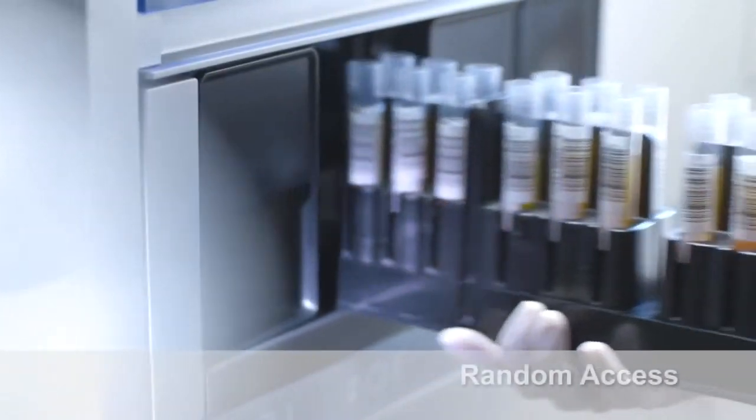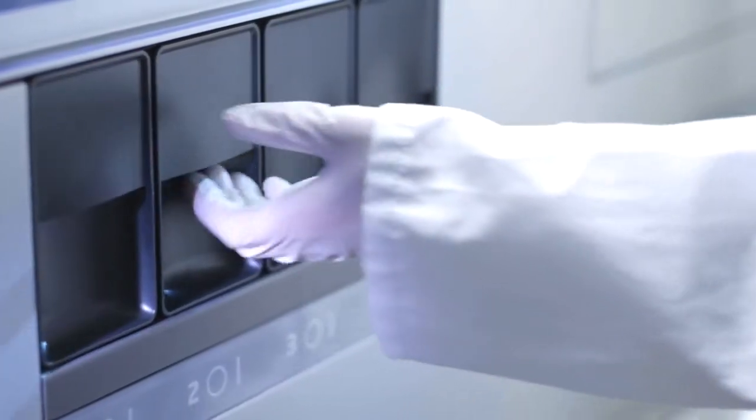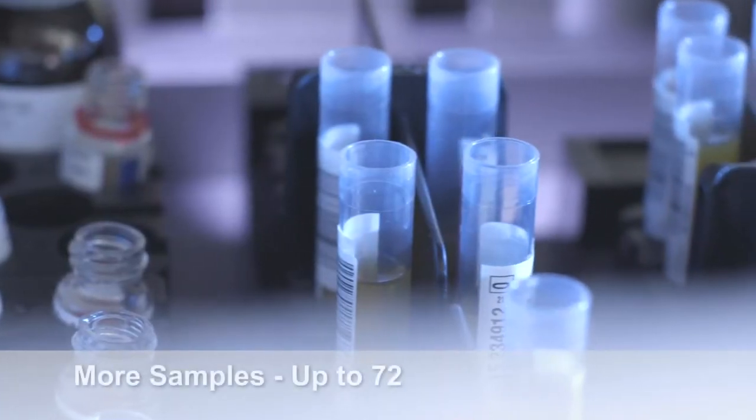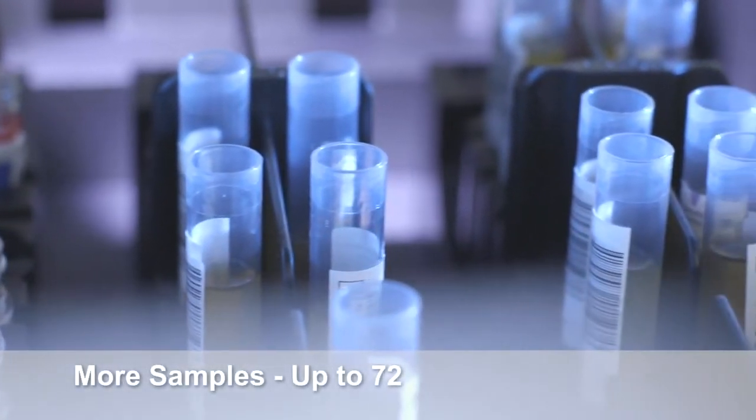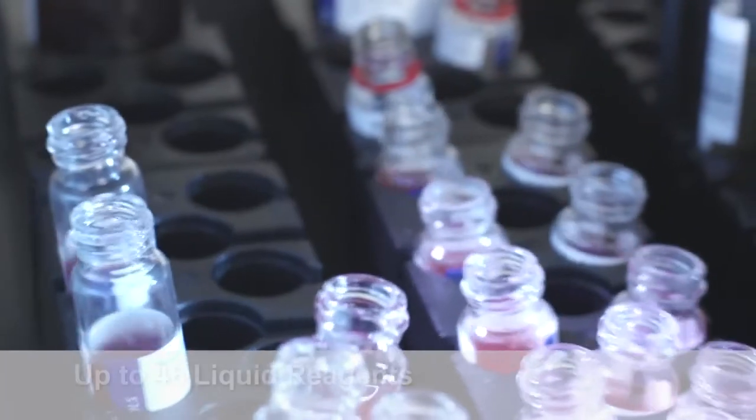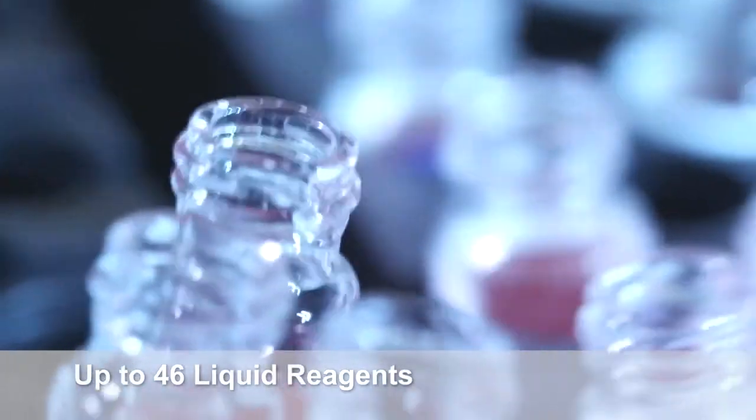You can load samples and reagents continuously, and they can be placed in any position. Thanks to the interchangeable racks, you can customize the configuration of the system according to your laboratory workflow. You can load up to 72 samples, or you can load more reagents. Up to 46 liquid reagents can be placed into the system.